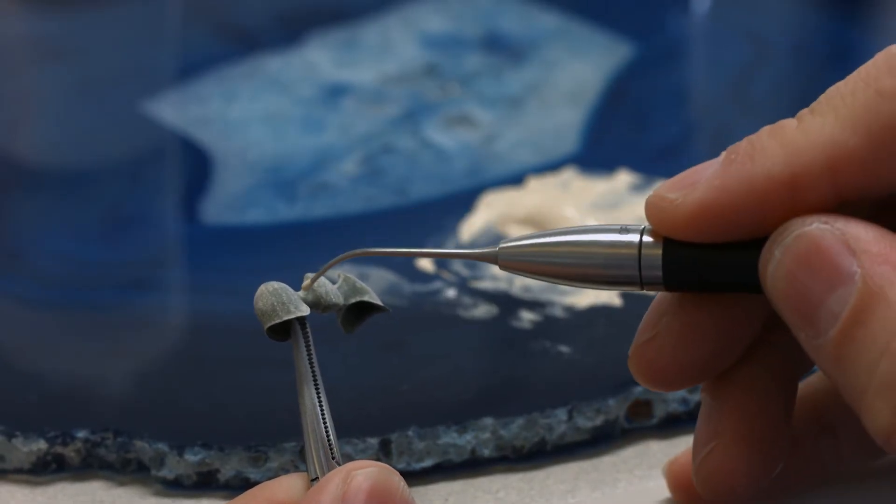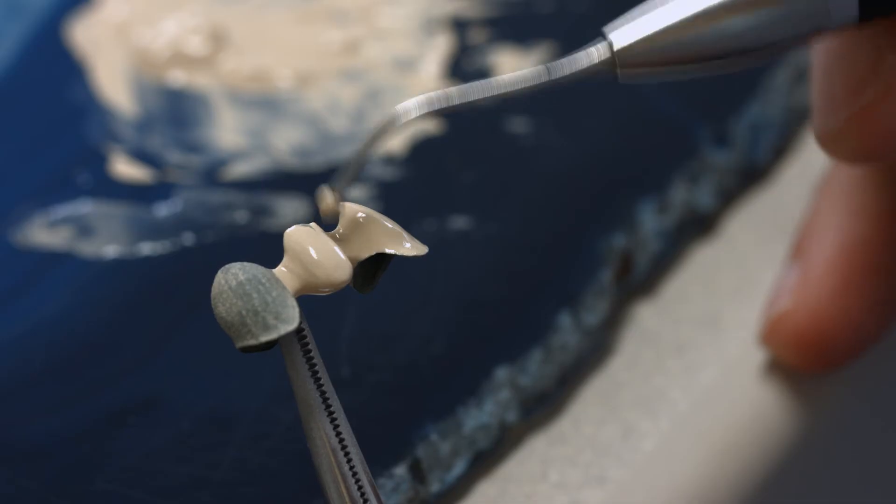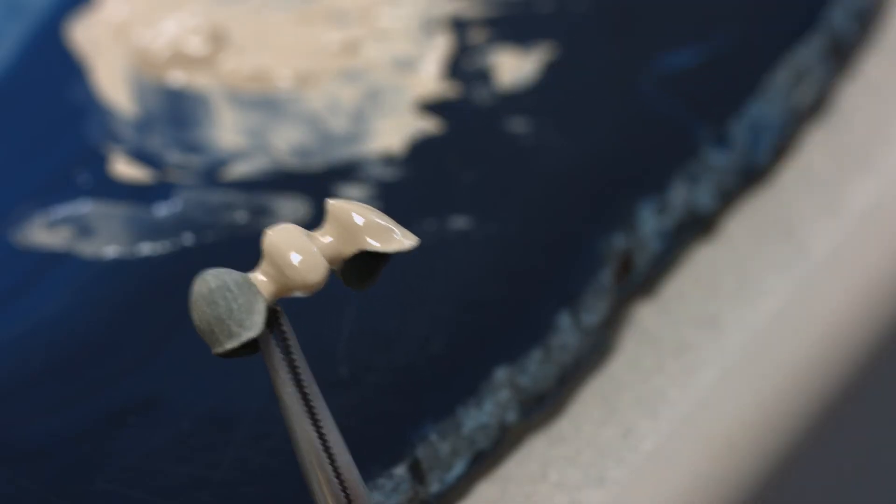Apply an even full coverage second opaquer layer. Use a brush or ball-shaped instrument for this purpose.